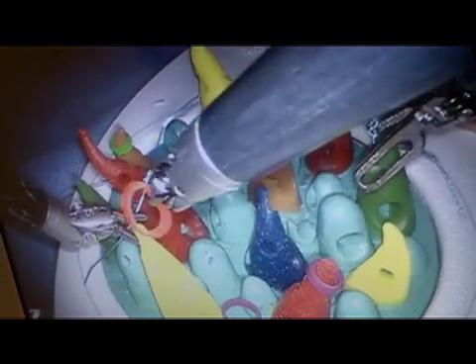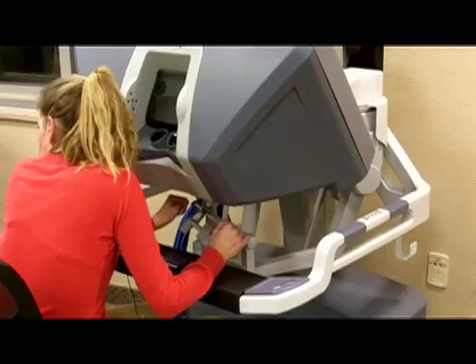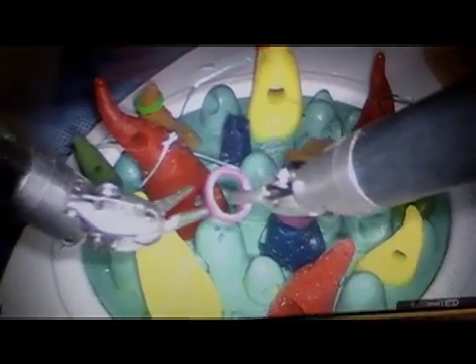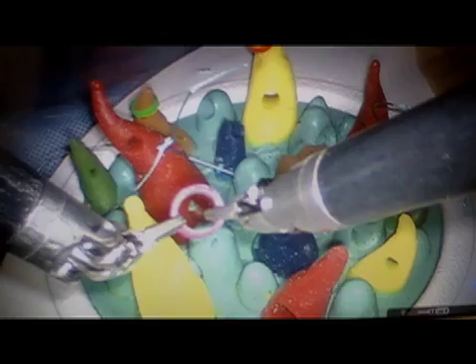That is remarkable. It's right there in front of you — it's fairly simple. It feels like little hands — kind of cool. I feel like an astronaut at the moment.